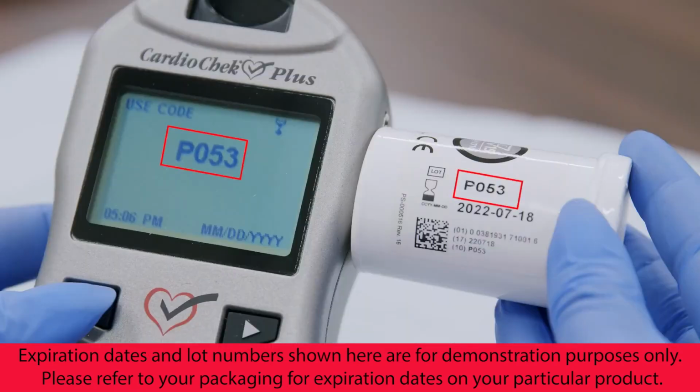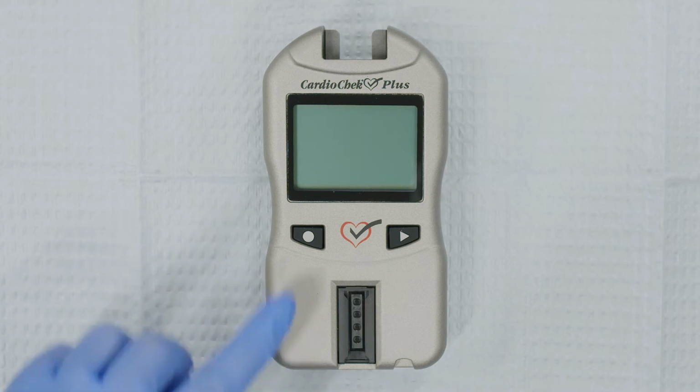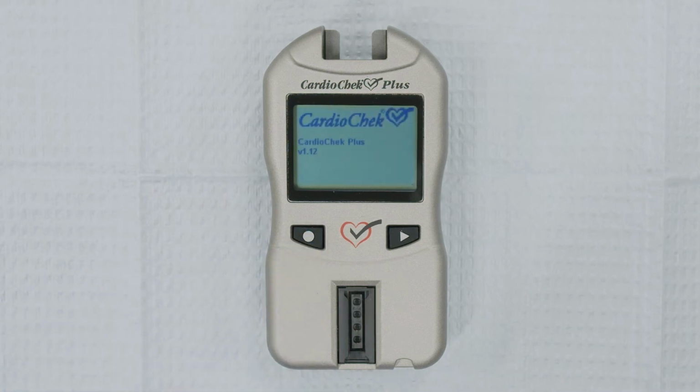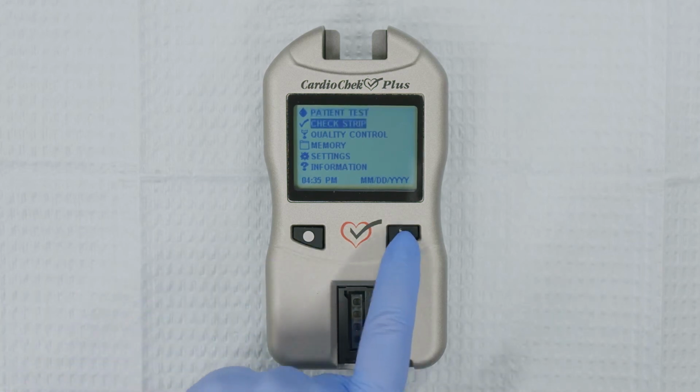Make sure that the memo chip lot number and the test strips lot number match. Make sure the analyzer is on a flat, stable surface. Turn on the analyzer by pressing either button. Press Next until Quality Control is highlighted in the main menu.